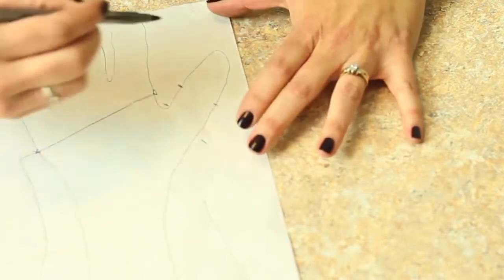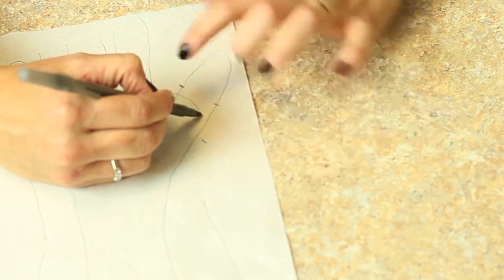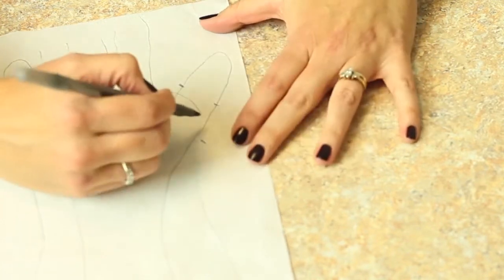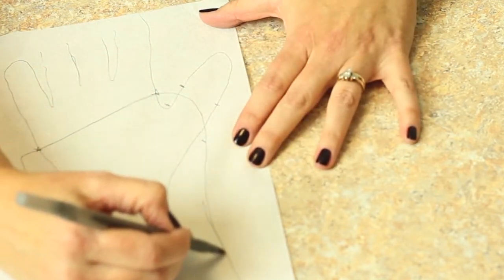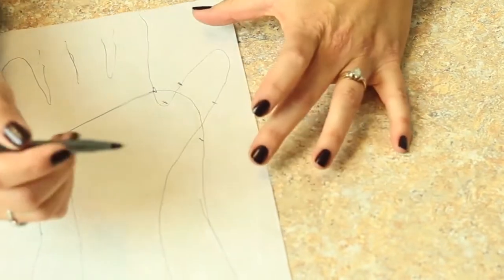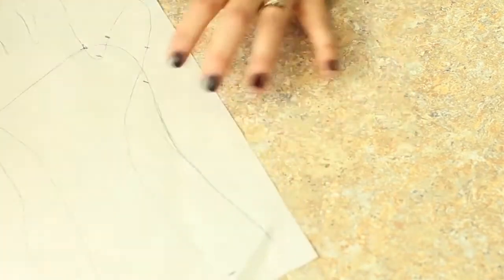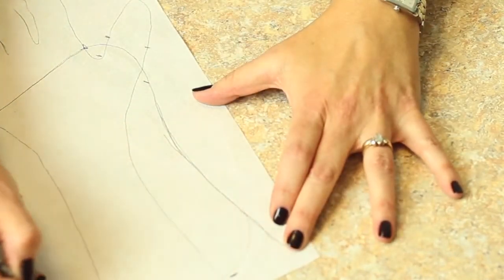On the radial side this is the tricky part. I'm just going to round out on the radial side going in between the IP and the MP joint and then connect down to that radial side. You never want to have any sharp angles on your orthosis pattern so we're going to smoothly bring that down. And again about two-thirds the length of the forearm.